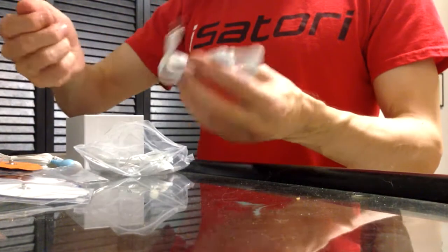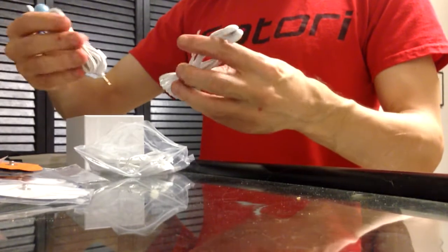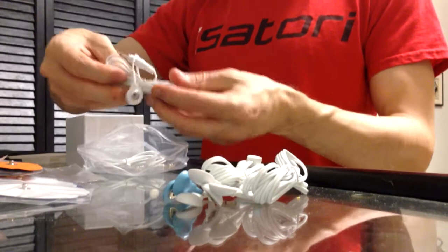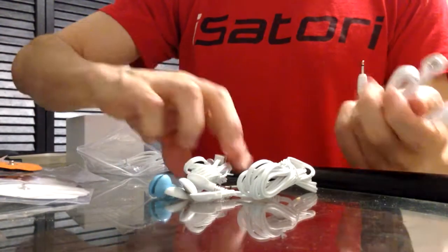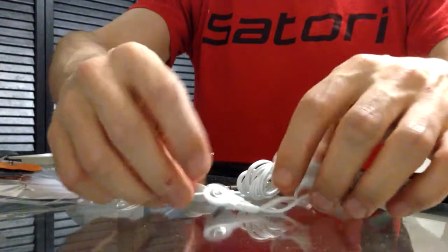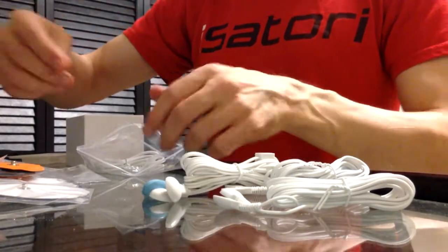Okay, then you get this extra set here. So that's a total of six — actually seven, or eight. Eight. So I'm looking at the ends, not the inputs. I don't know why there's so many. Two, four, six, eight — who do we appreciate!